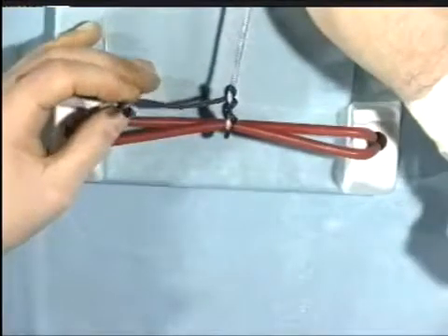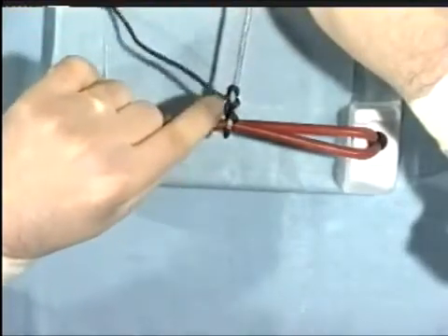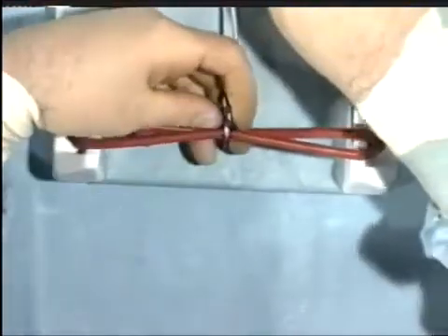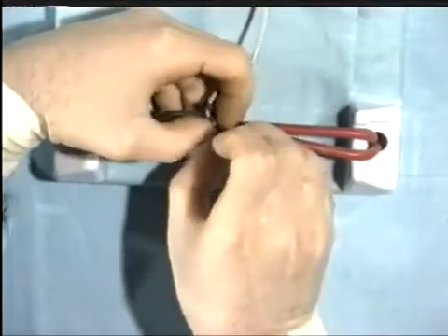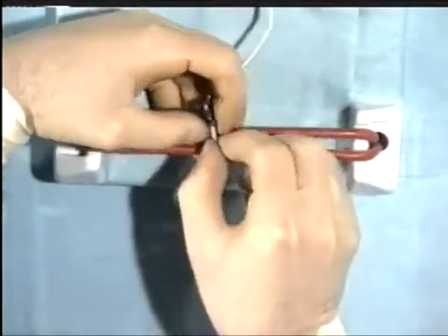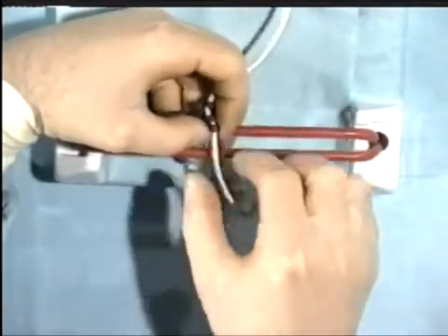And you can see the white thread runs straight through the knot, resulting in what is virtually a slip knot, and the white thread can be withdrawn. This is therefore not a secure knot.